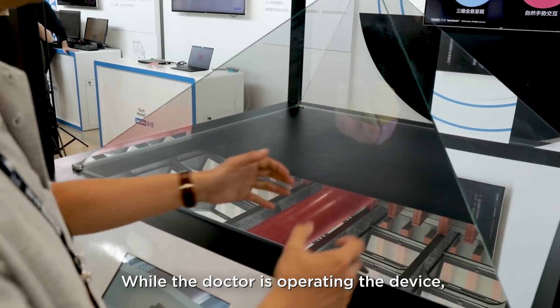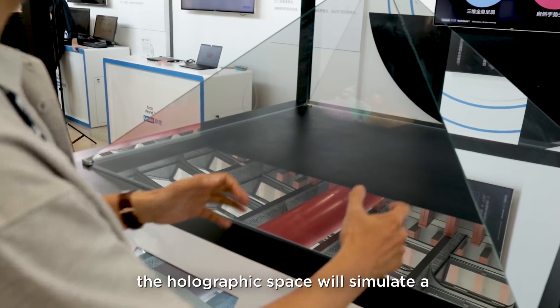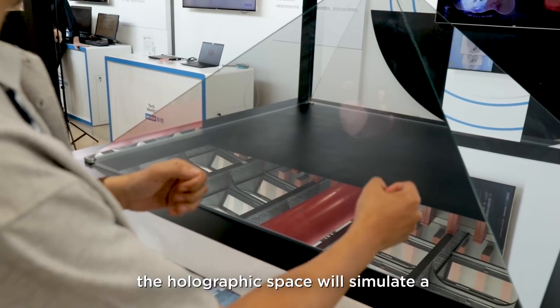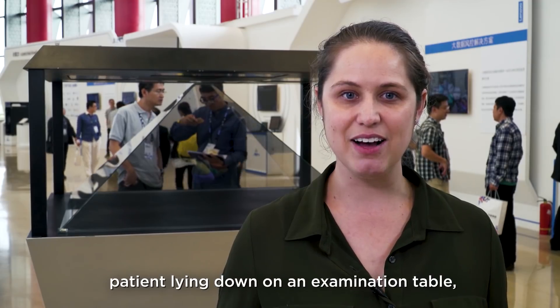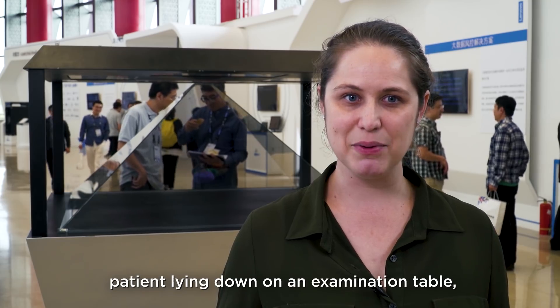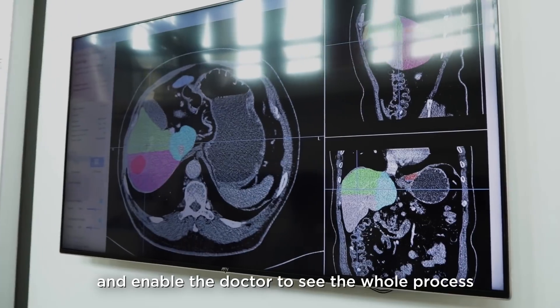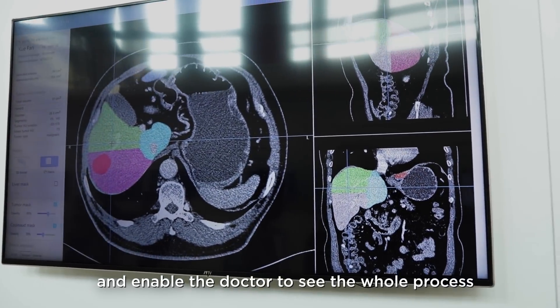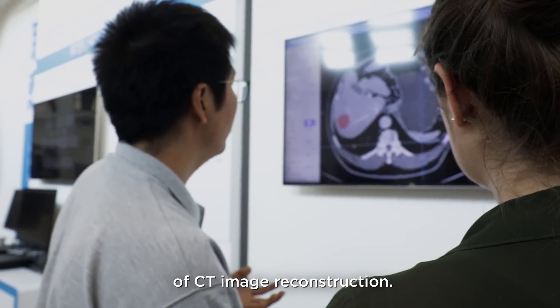While the doctor is operating the device, the holographic space will simulate a patient laying down on an examination table and enable the doctor to see the whole process of CT image reconstruction.